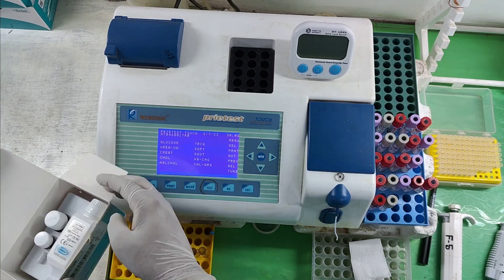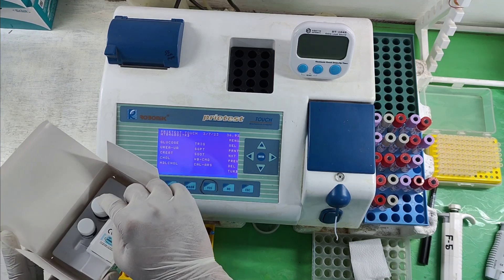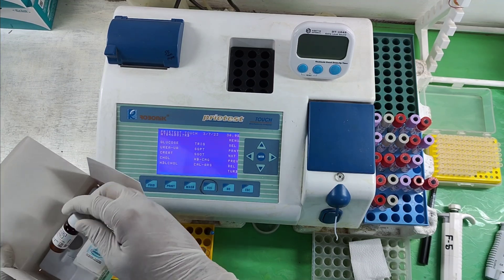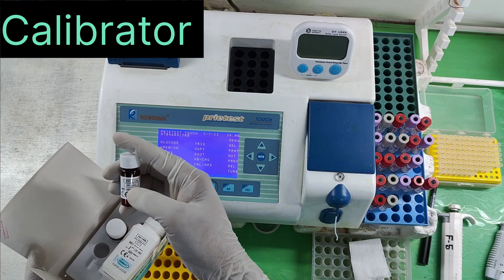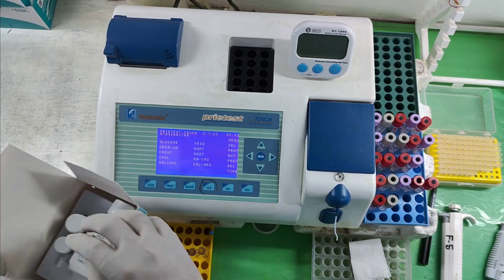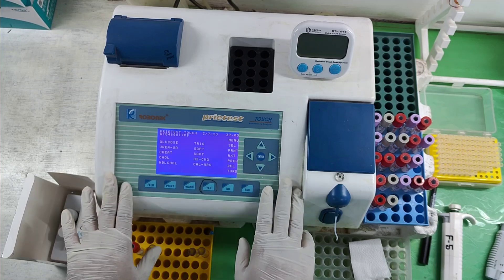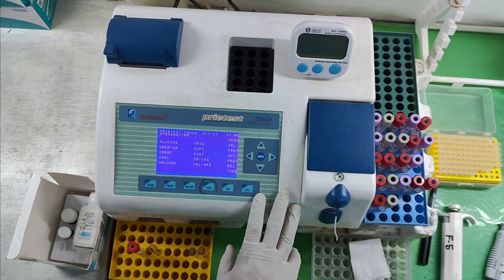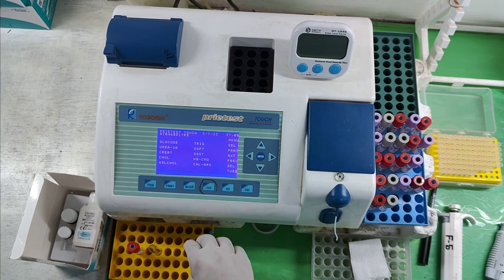Here, similar to the RA factor reagent, we have Reagent 1 and Reagent 2, and the calibrator having a value of 291 international units per mL. I have already calibrated the ASO titer in this machine. Now I am going to show you how to process the test.